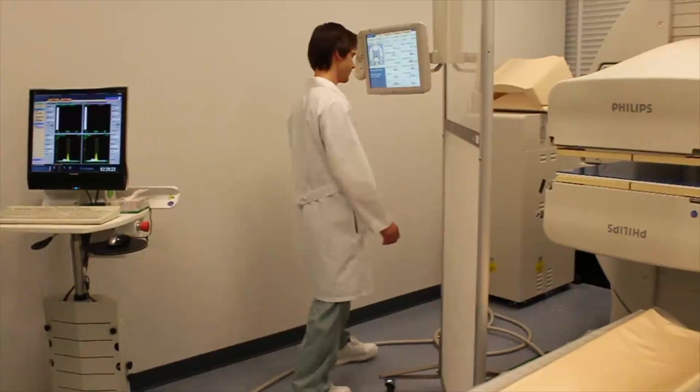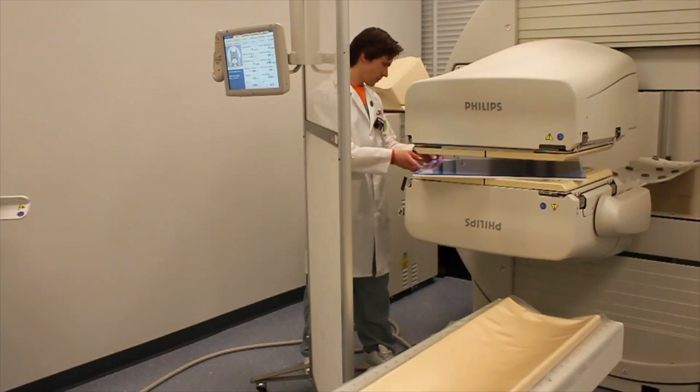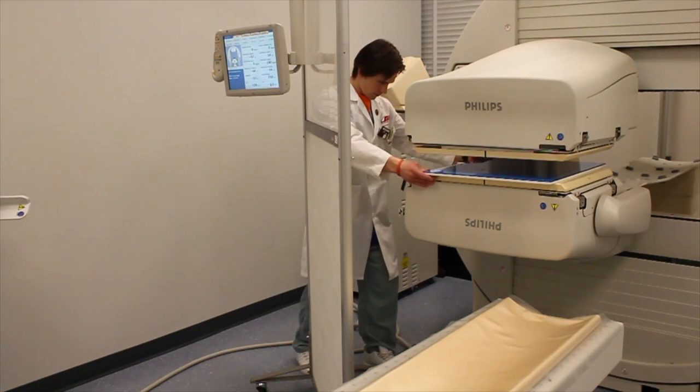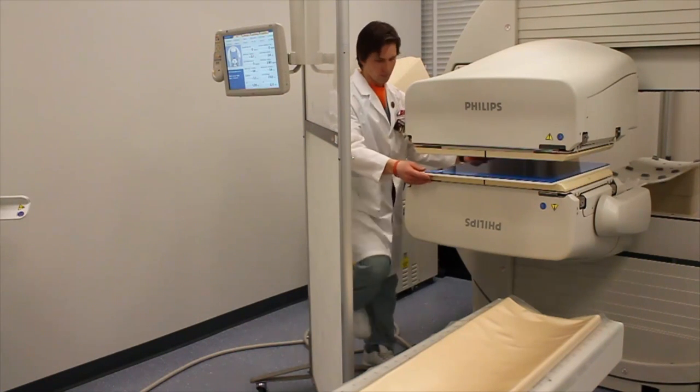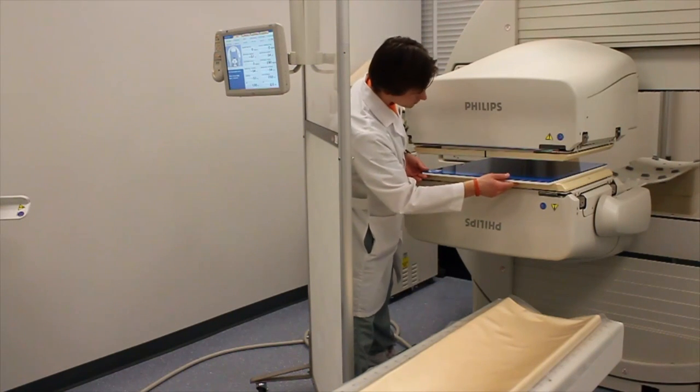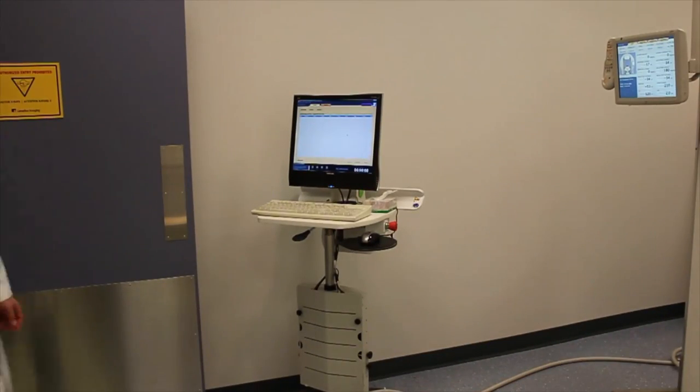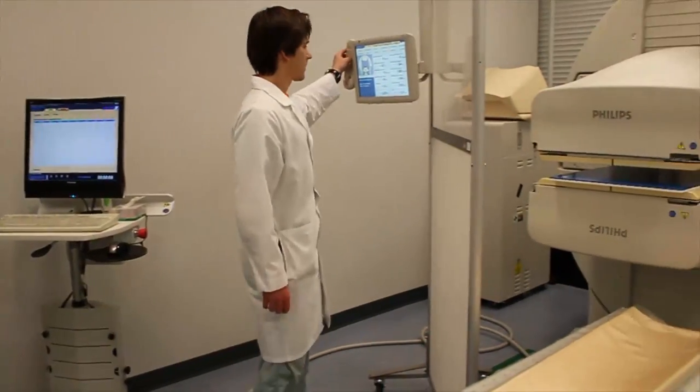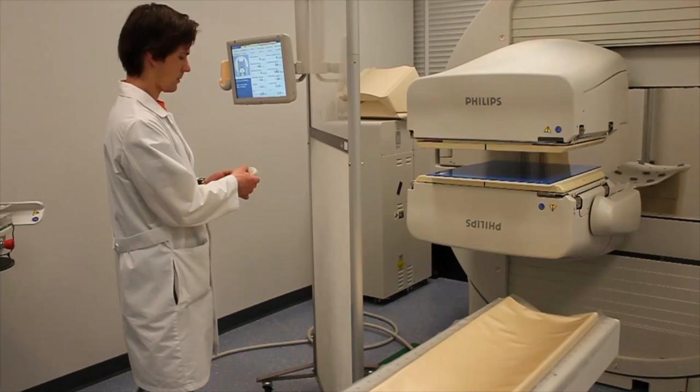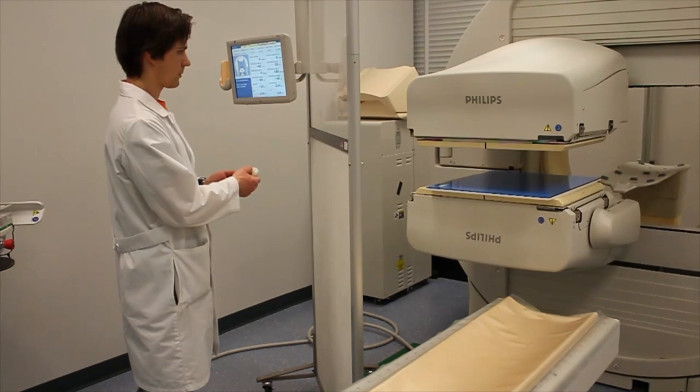In order for the weekly bars procedure to be complete, four images have to be taken per detector. The bar phantom has to be rotated by 90 degrees, the source replaced and another acquisition completed. After that, the bar phantom would have to be flipped and another acquisition completed. And finally, another rotation by 90 degrees. For the purpose of the lab competency skill evaluation, we will perform only one view and the rest of the procedure will be explained by the student.